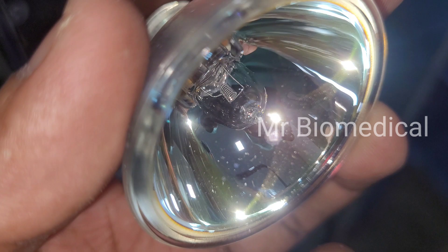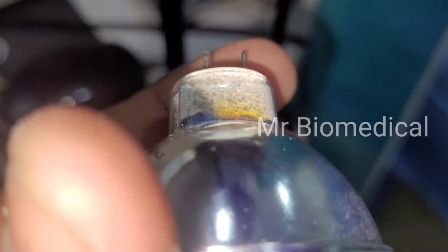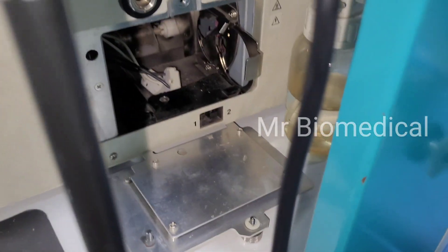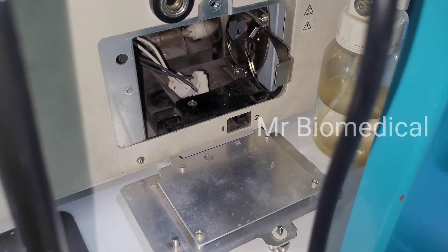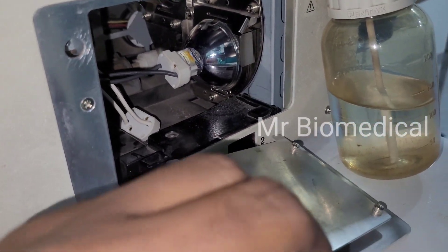I'd check whether it will work or not, but I don't have a multimeter, so I'm not going to test with one. What I'm going to do is directly change the bulb. I have a new bulb here and I'm changing it now.